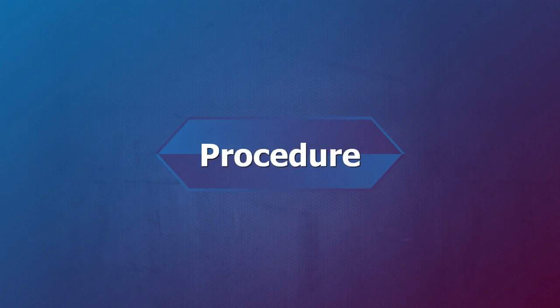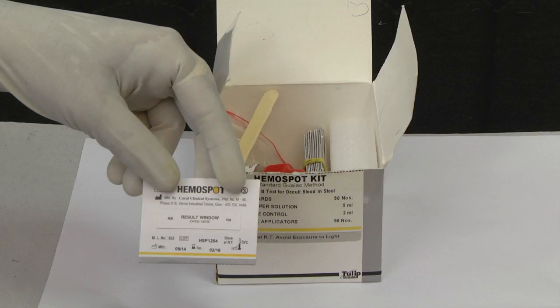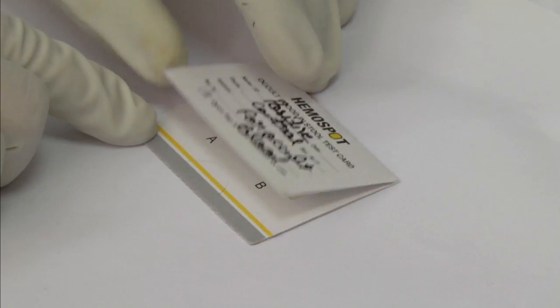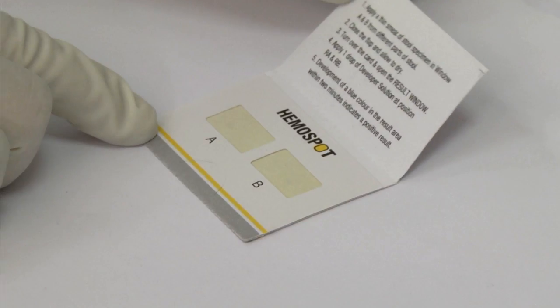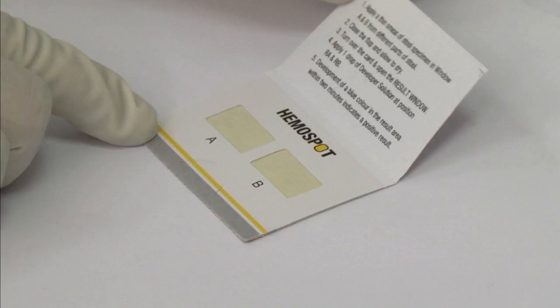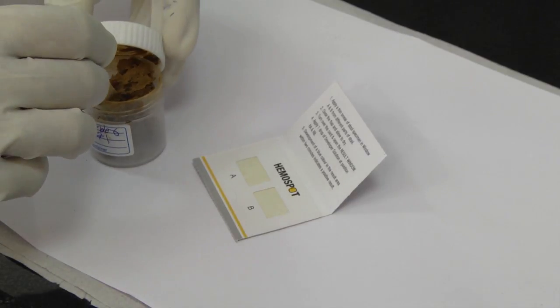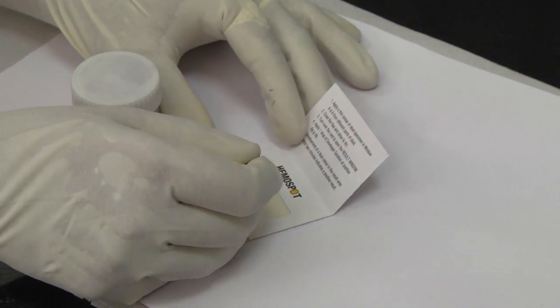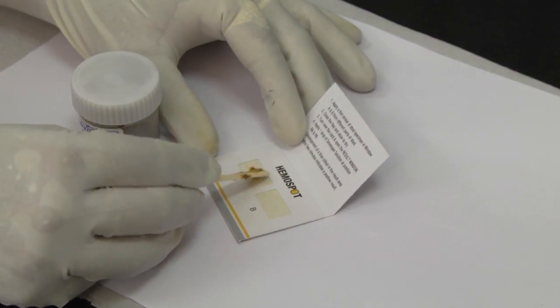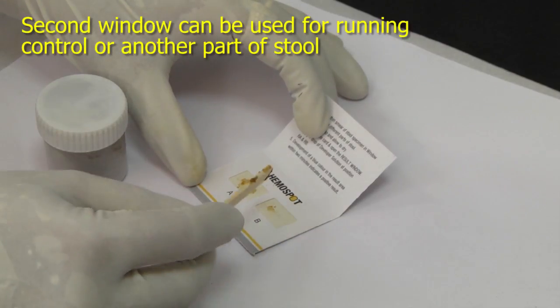Procedure: Retrieve the required number of test cards to perform the desired number of tests. Label the cards with the correct patient identity. Open the sample application windows labeled A and B respectively to expose the reactive surfaces of the test card. Using the sample applicator provided in the kit, spread a very thin layer of stool on the reactive surface on window A, and similarly on window B from a different part of the stool.